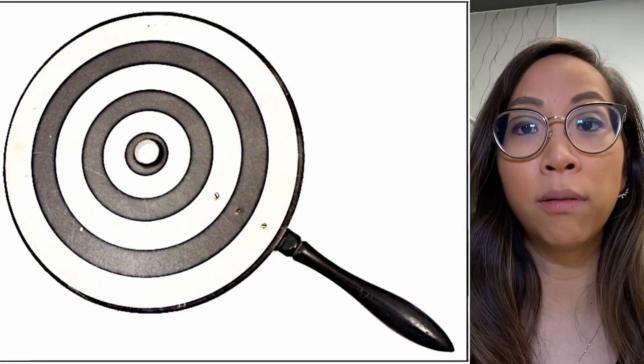This brings us to a brief segment on the history of corneal topography. One of the earliest advancements in assessing the shape of the anterior or front surface of the cornea was in the late 1800s, with the observation of concentric rings reflected off of the cornea. This eventually gave rise to the development of the Placido disc. The concentric rings are reflected off the cornea — these reflections are referred to as mires — and are then captured by a digital camera. The pattern of light reflection reveals the shape of the anterior surface of the cornea, and the reflected rings are now processed by software to provide more detailed information than ever before.